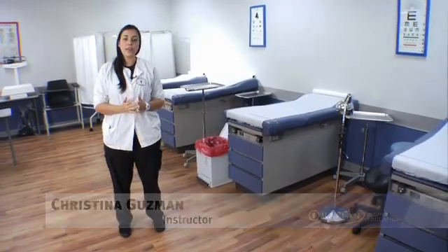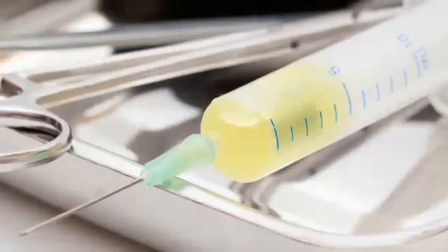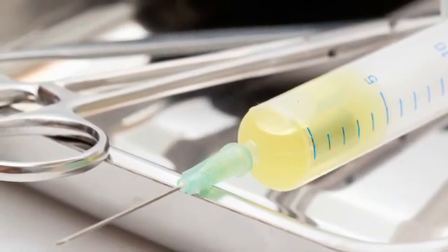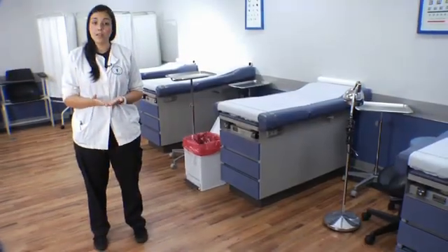Hello, my name is Christina Guzman. Today we're going to be talking about the four most common surgical trays that a medical assistant will be setting up in a doctor's office. It's very important for the medical assistant to understand the equipment that is used on these trays and how to set them up properly. You really want to make sure that you have your equipment set on time and ready for the doctor to go. Let's get started.